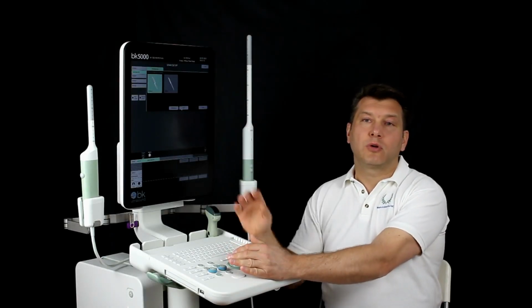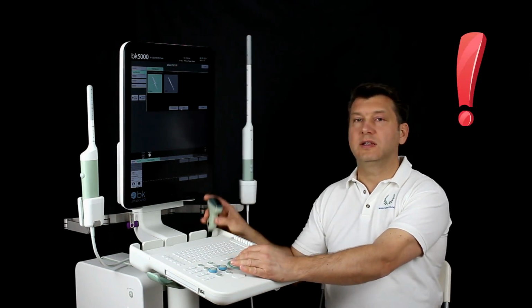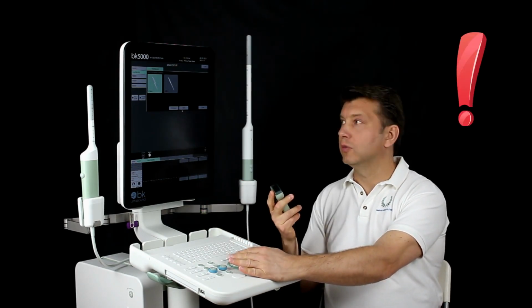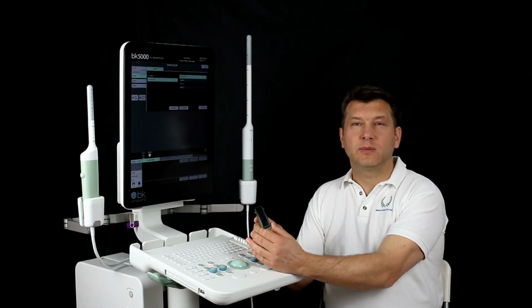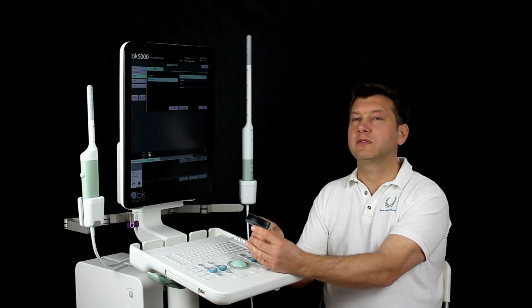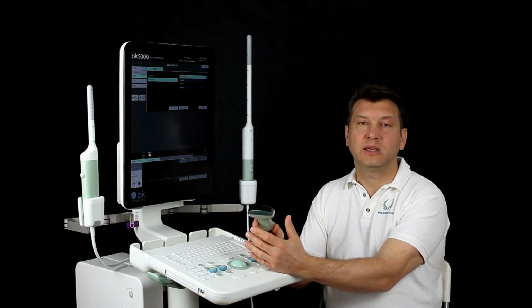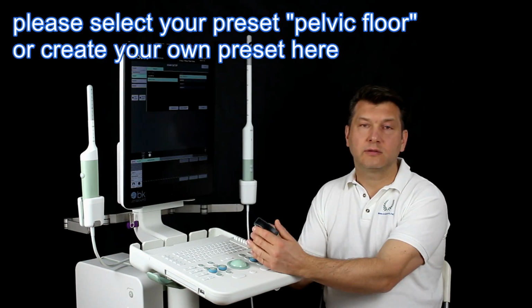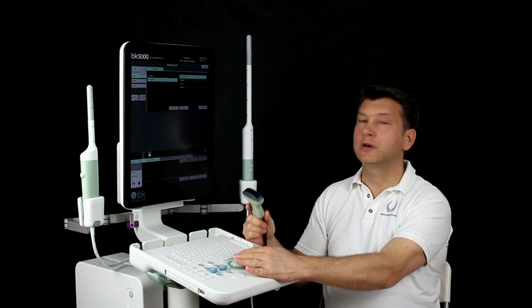Then we arrive at the probe selection menu and click on the desired probe. In this case, this is a convex array probe. This leads us to the menu item presets. We can select our presets here and also save them, so they're ready for later and do not have to be re-entered again. We choose a pelvic floor preset here or create our own pelvic floor preset.